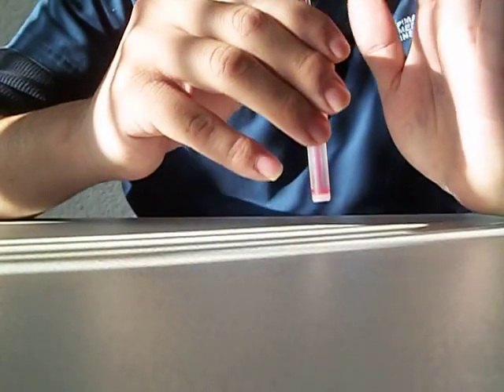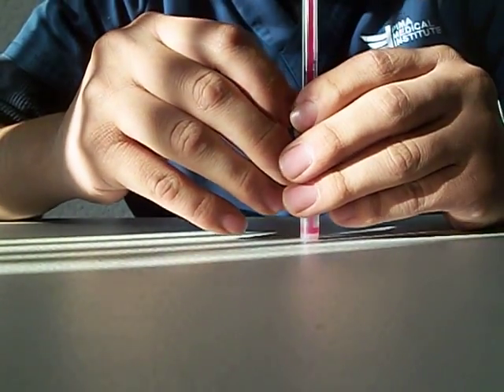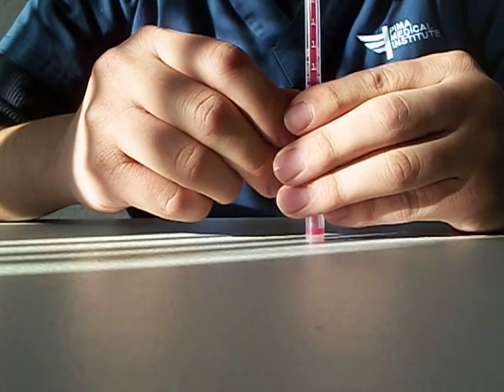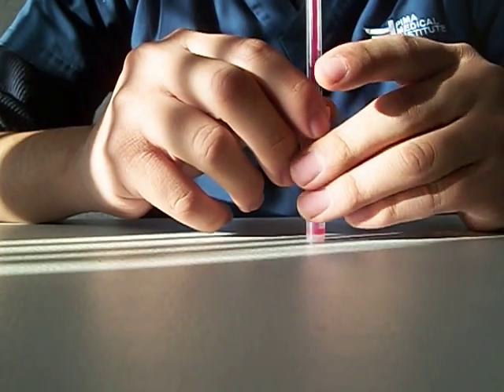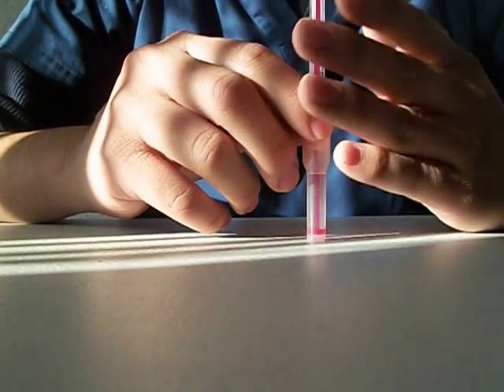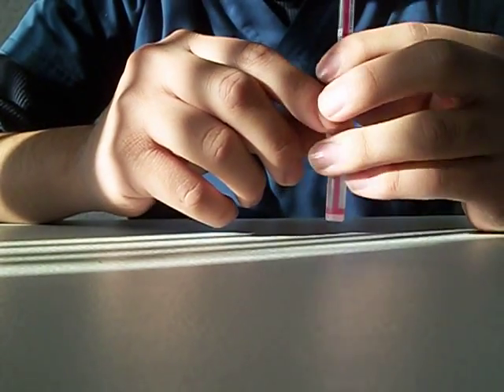Then after that this thing is ready to go to the rack, but first I'm going to put the name of the patient, my initials, and very importantly I'm going to put the time. Because I'm going to be back in an hour and get the results in an hour, so the time is very important right here.